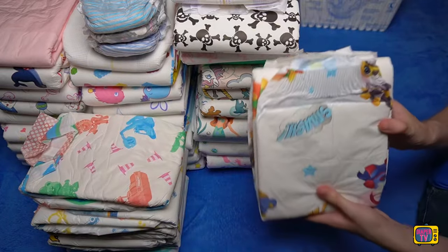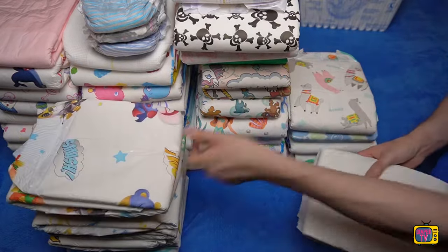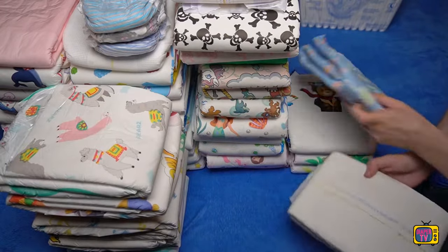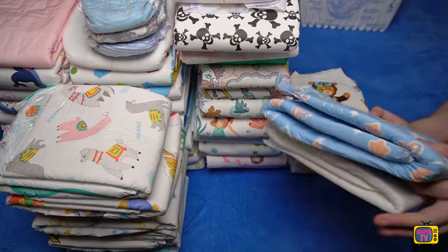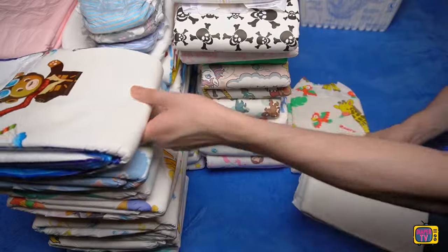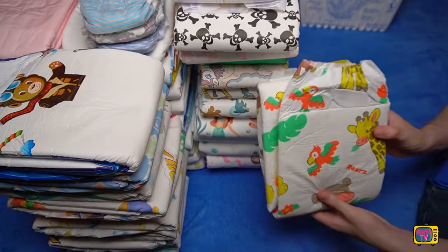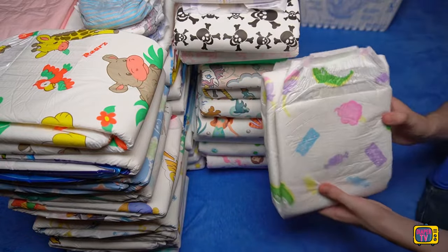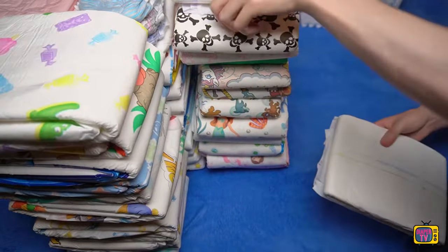The Supreme Brief is not recommended if you are looking for a diaper that is as soft as possible. Despite the folds, I don't find it as soft as many in the ABDL range. The film itself is otherwise pleasant. You also have to do without colorful motifs — there is no more color than the strip for detecting wetness. It is clearly aimed at medical customers and less at the ABDL scene.